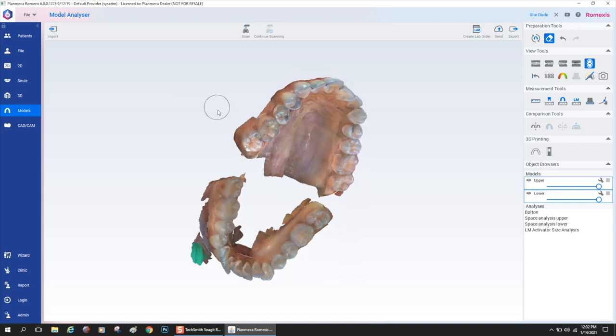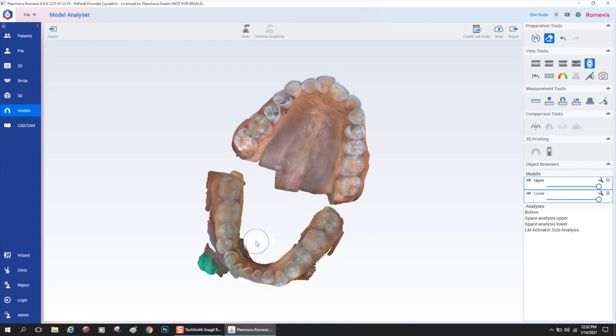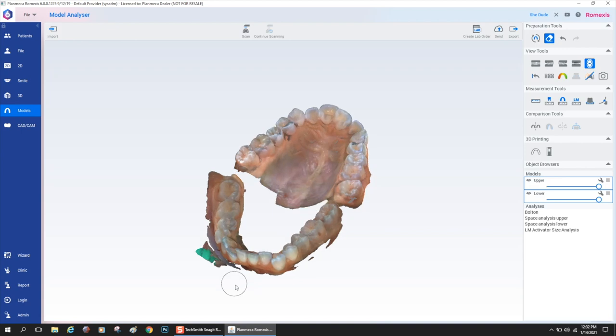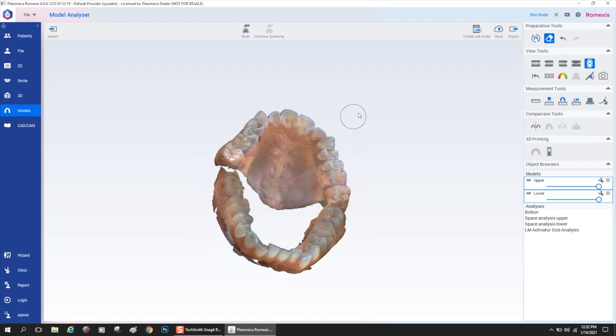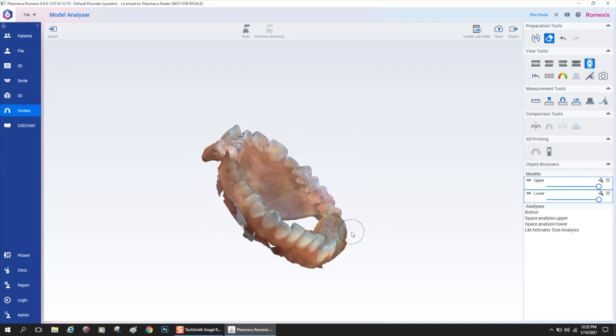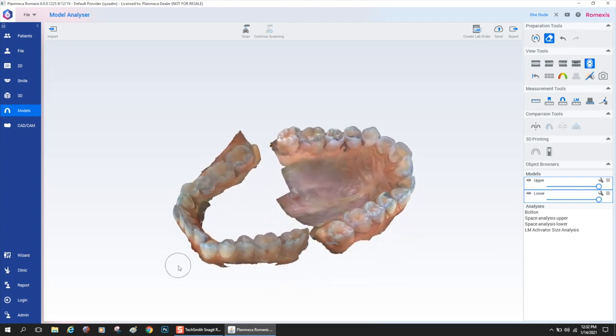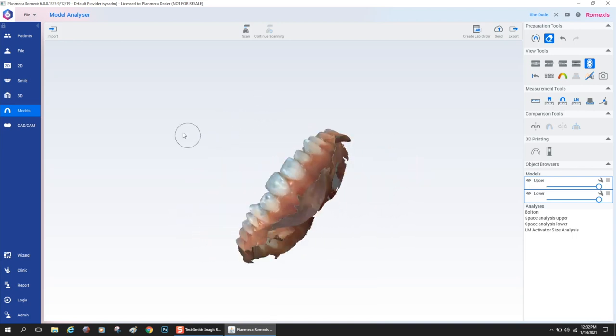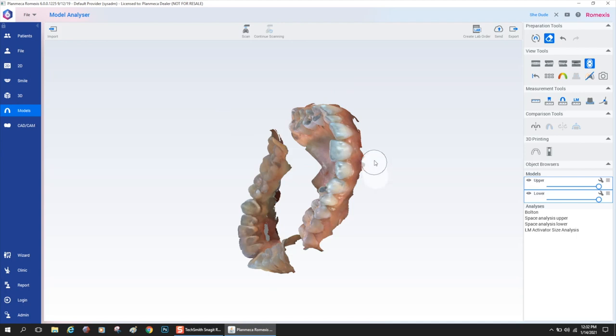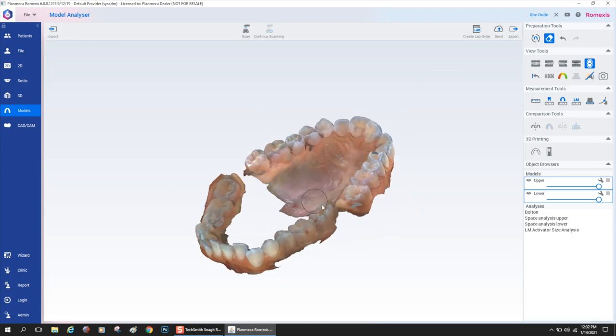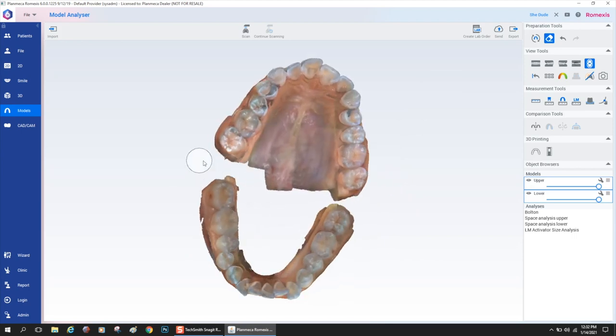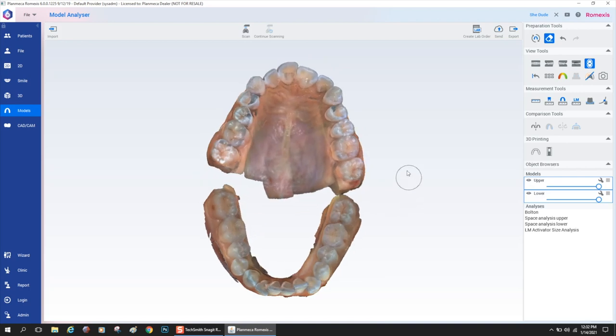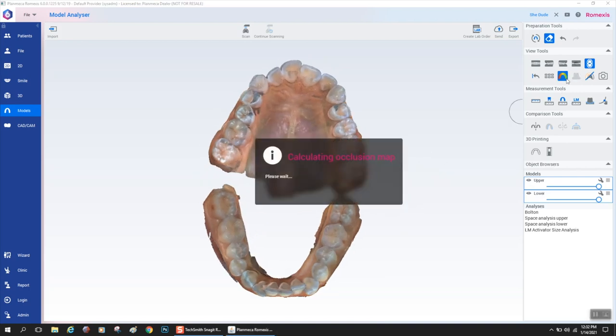But here I'm at the eraser tool and I'm just removing some weird stuff that maybe I accidentally scanned. I will say the software engine has been dramatically improved to automatically eliminate the extraneous data from scanning. This model was scanned using the older version of the scan engine, so we didn't get the nice, crisp, clean edges that come out of the software these days. You just want to make sure that you don't have any weird ripples or folds in your model. This is going to be important later when we get these ready for 3D printing.